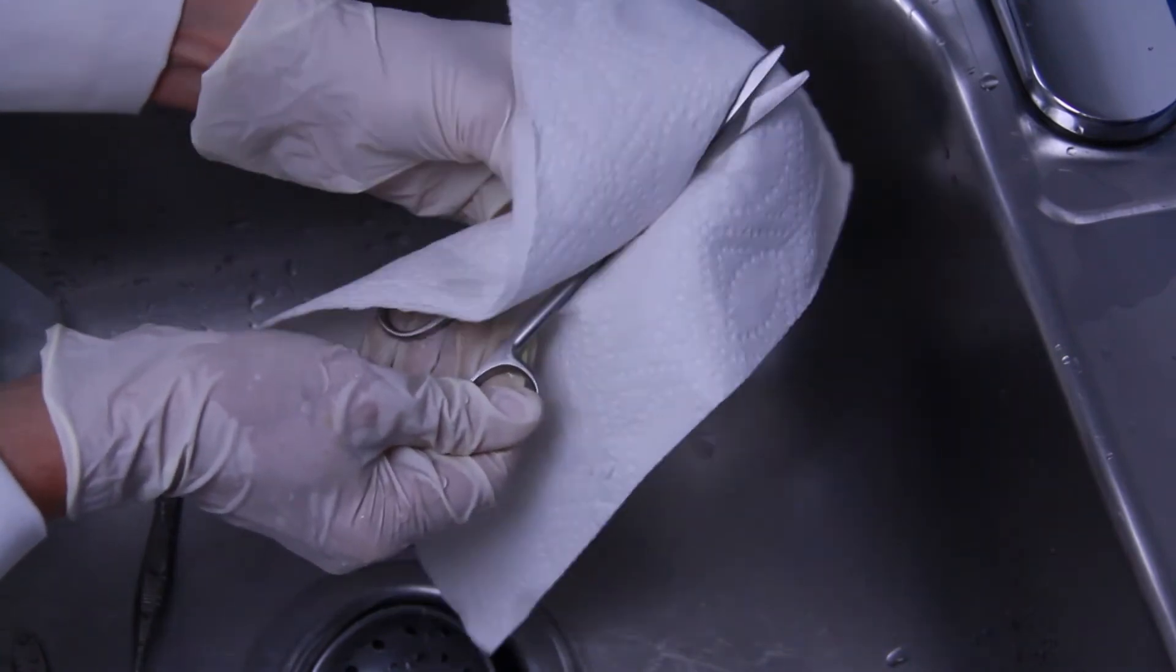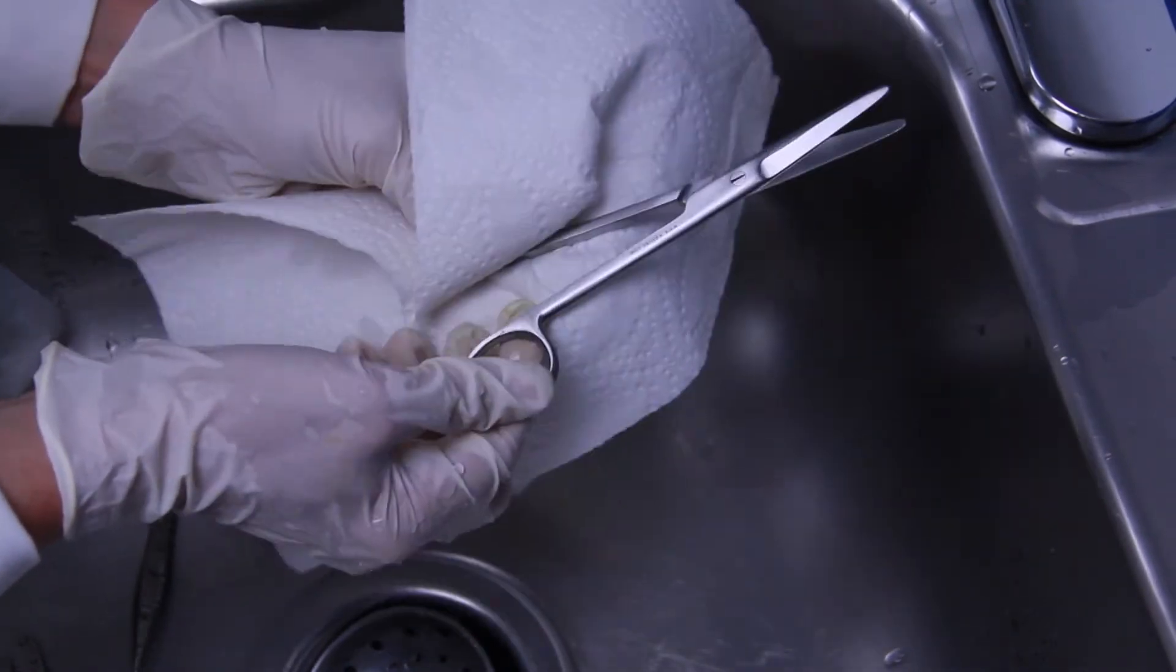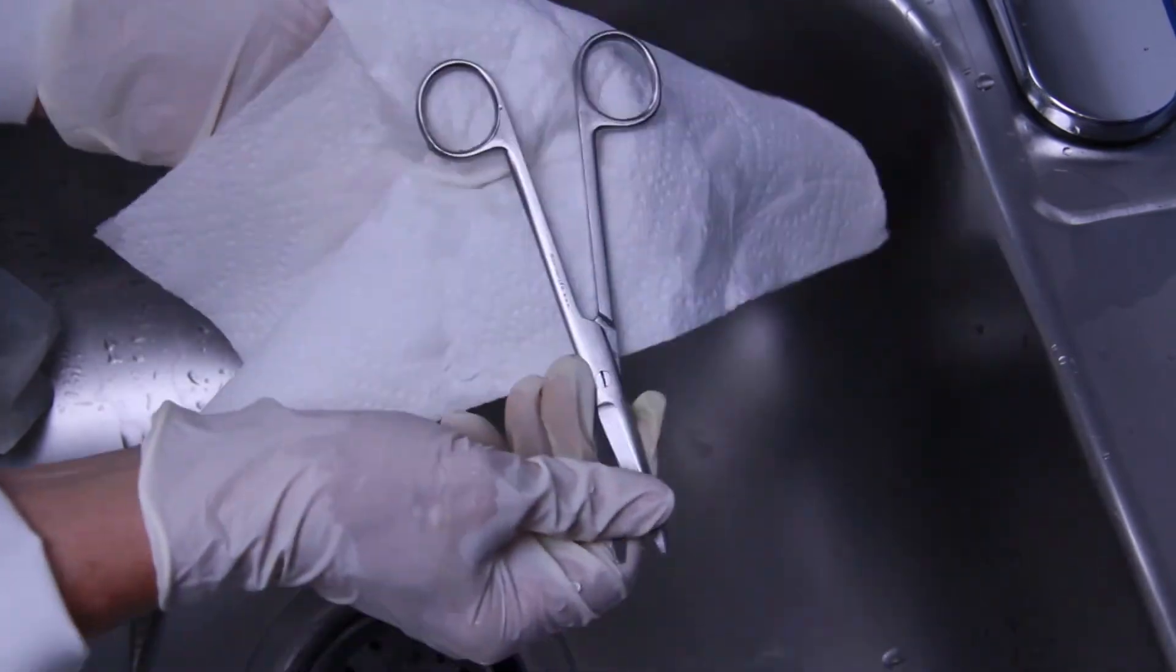Dry instruments thoroughly with a clean towel. This minimizes the risk of corrosion and formation of water spots.